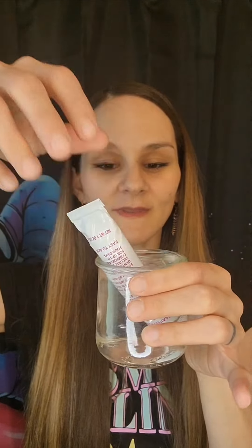If you don't know how, you can find that. First thing you're going to need to do is soak the cushion grip in warm water for five minutes. You're going to make sure that it's nice and warm so it's easy to work with. Then, you're going to make sure that your denture is as dry as possible — top and bottom — make sure that there is no water left on it. Otherwise, the cushion grip is not going to stick the way that it is supposed to.